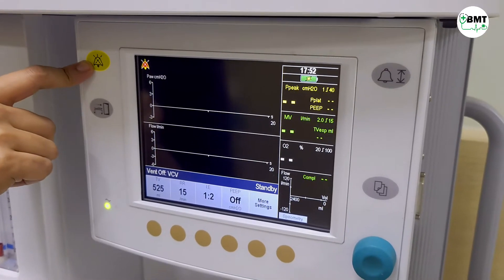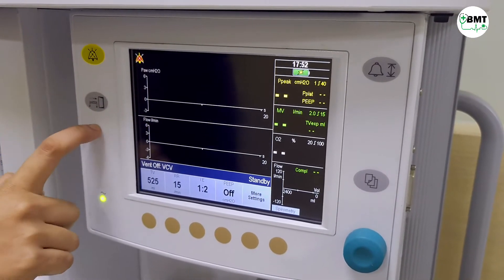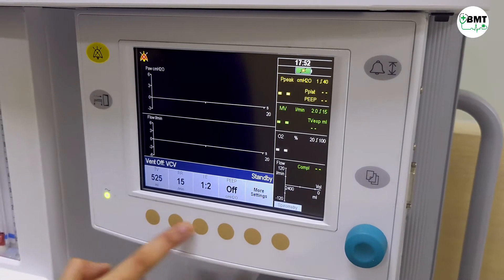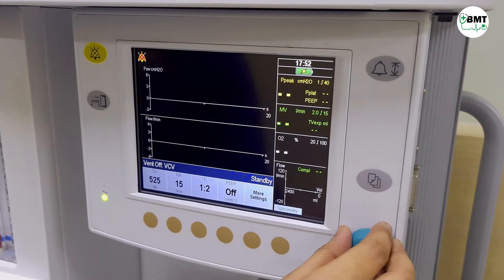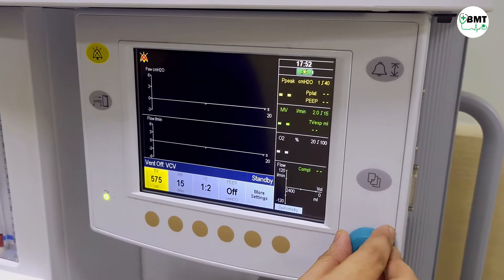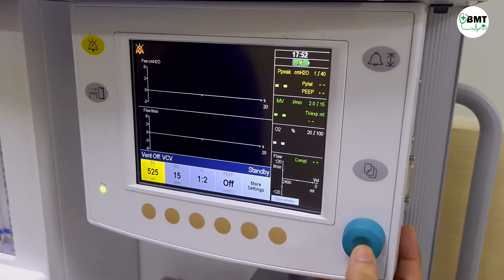This is the alarm mute button. This is to end the case. These buttons are for operating the settings. From here you can increase or decrease the values.